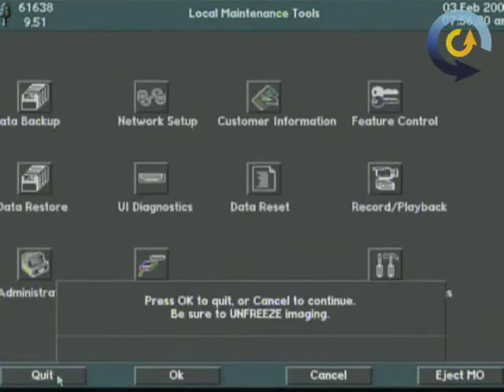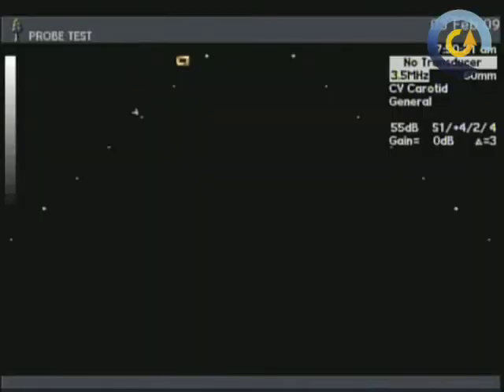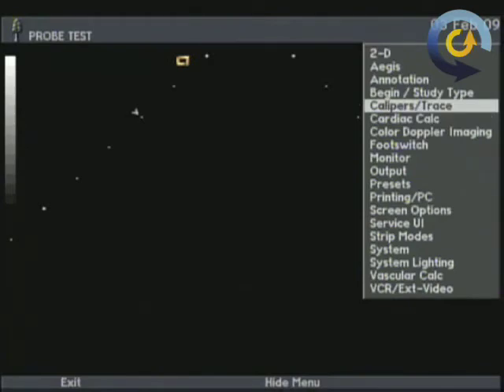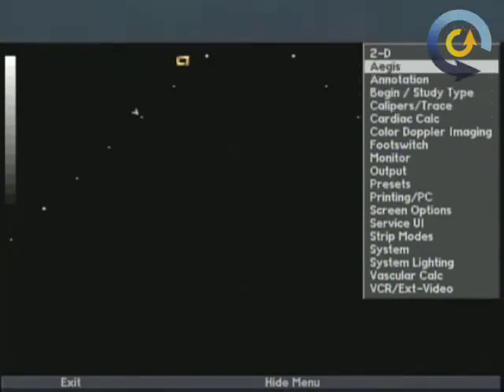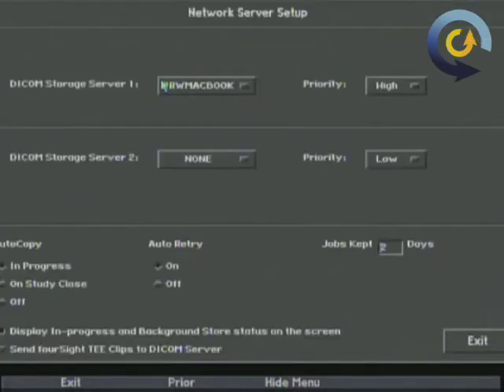Go back to prior. Go back to quit and we end up on the image. Now with the image we have one more thing to do. Go back to the setup menu above the 8. Use the trackball to slide on down to Aegis, the second item, and hit okay. That's just the name of their internal storage device.